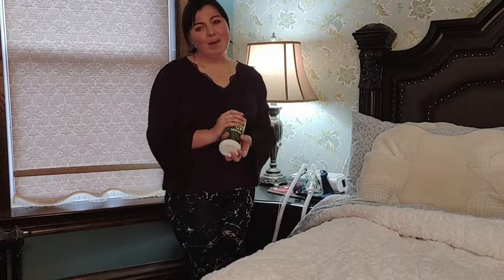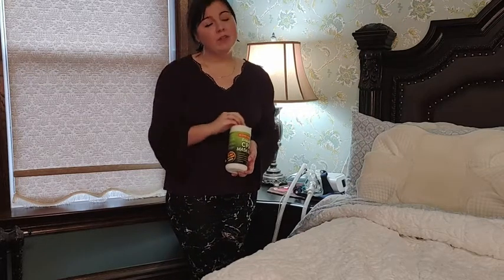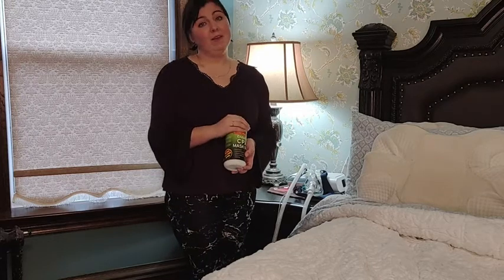When I first heard that the product is eco-friendly and 100% biodegradable, the back of my mind starts to wonder — is it actually going to clean my mask? But as soon as you start using this product, you realize how effective it is.